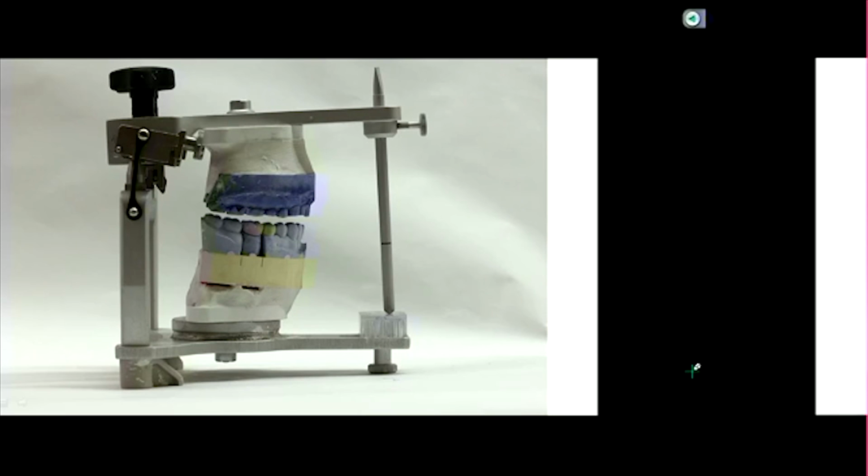But you're right in the sense that the limitation of a CAD/CAM system is that at this point you can't do a virtual face bow, or it's very challenging. There's a way, but you need a 3D cone beam scan and all that. It's just way too expensive for normal everyday use. So if you have a crown, whether it's designed on CEREC or on a triple tray, or just on a non-adjustable articulator that doesn't simulate what the patient does, the thing you've got to watch out for is not so much contact in MIP, because that's going to be the same.